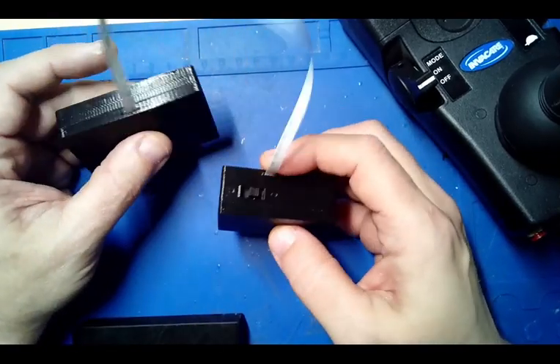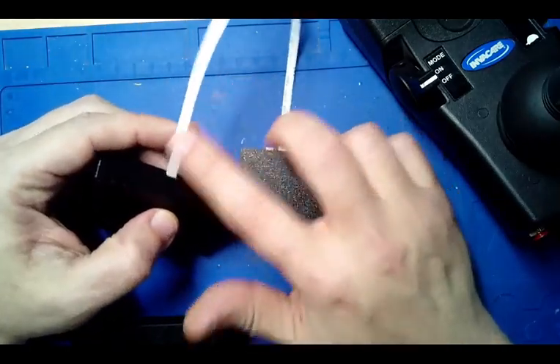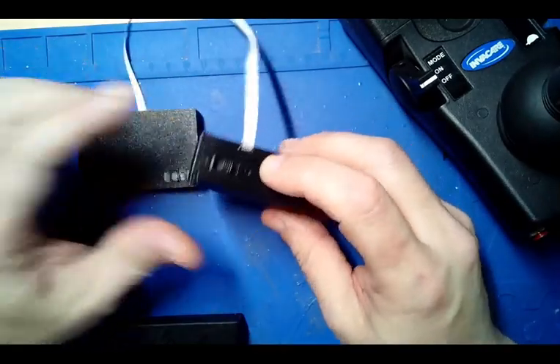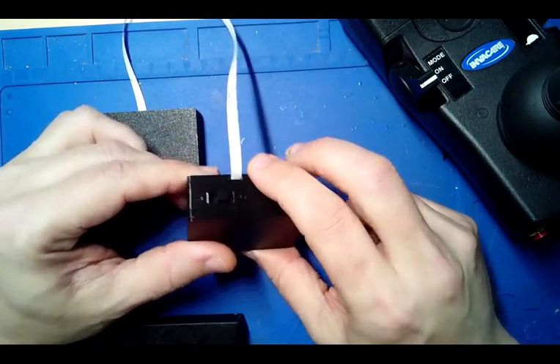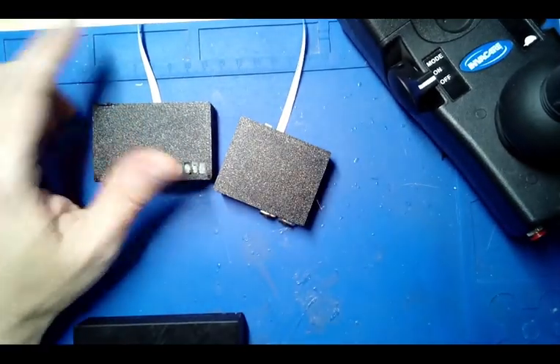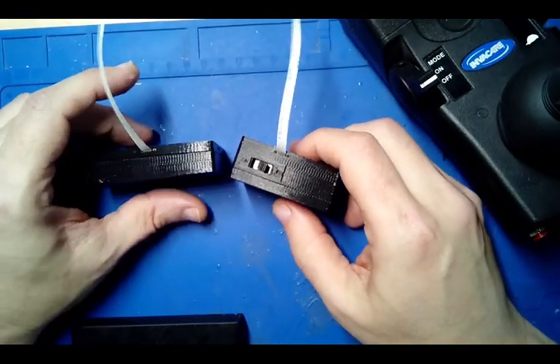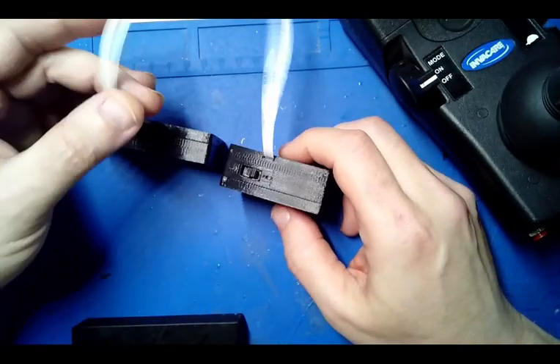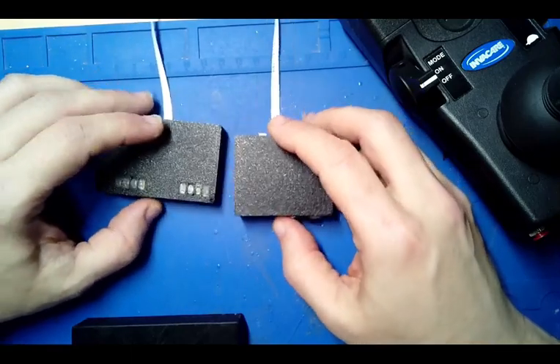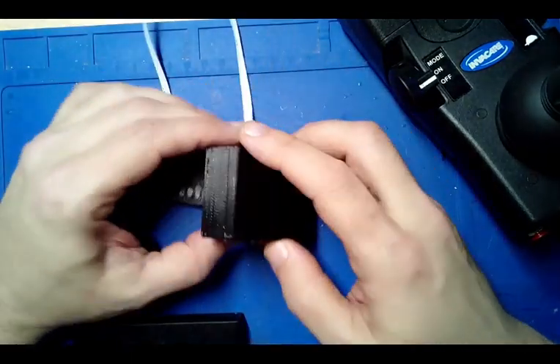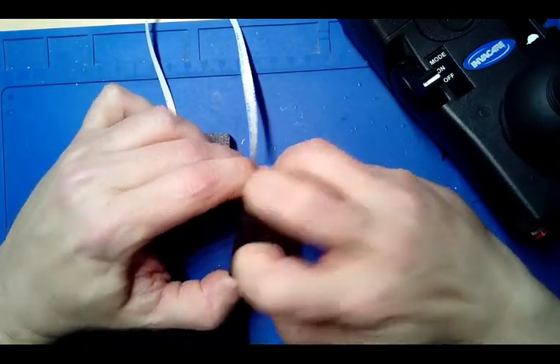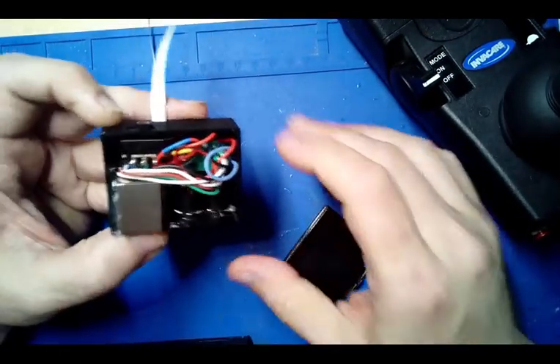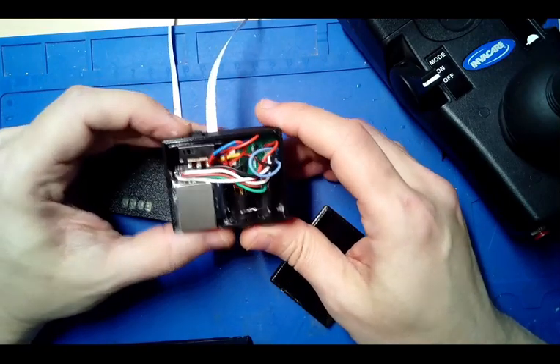Now, because I don't like hard wiring, that's part of the reason why I went with FPC ribbon cable. There are small connectors in each of these units so that they could be connected and disconnected and replaced if need be. So if this fails for some reason, you don't need to do any soldering or anything, though the enclosures are pretty tight, so some of it's going to have to be taken apart to get into that.